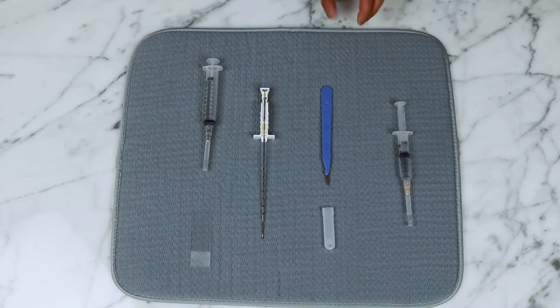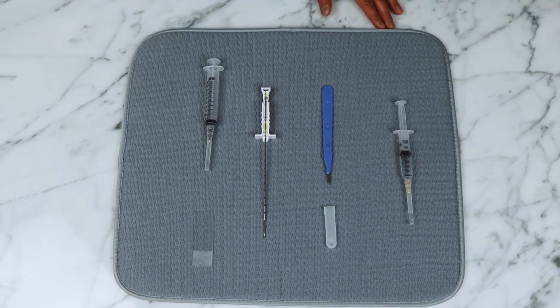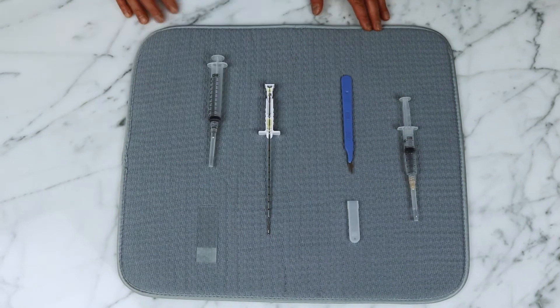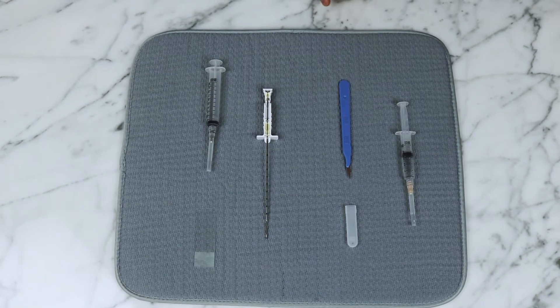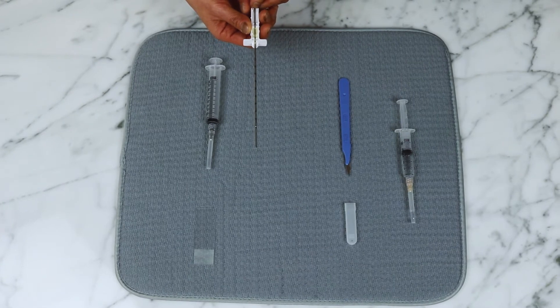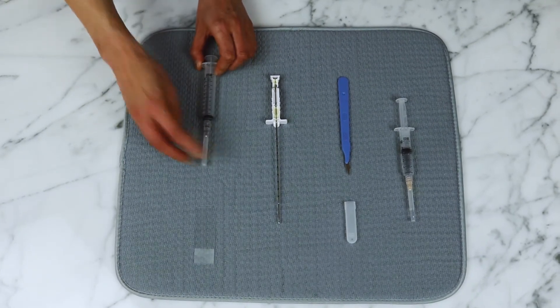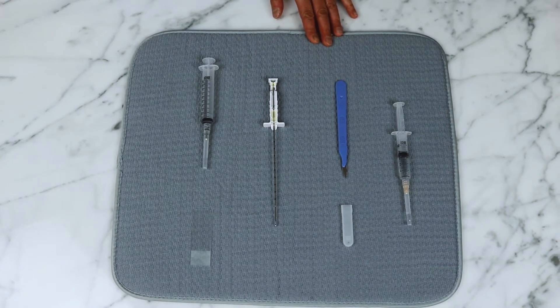Here I have some local anesthetic which the doctor uses to numb your skin and the path of the needle so that you don't feel pain during the procedure. I also have a small scalpel which is used to make a small nick in the skin in order to insert the needles. Here I have a trocar biopsy needle, and here I have the needle and syringe used for a fine needle aspiration.